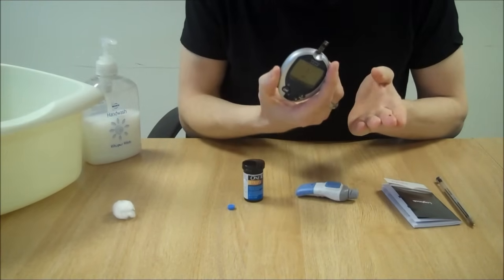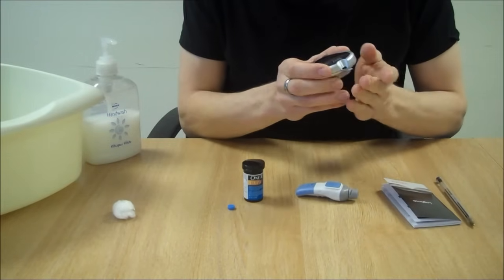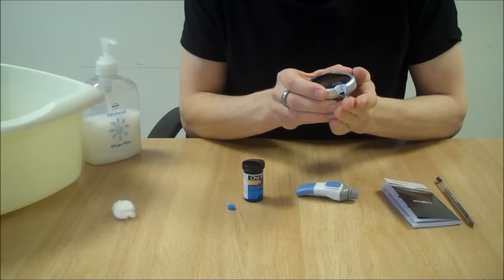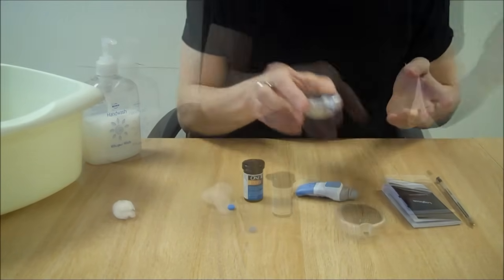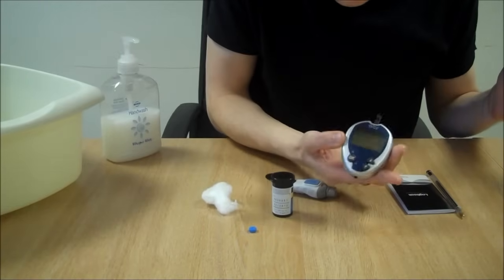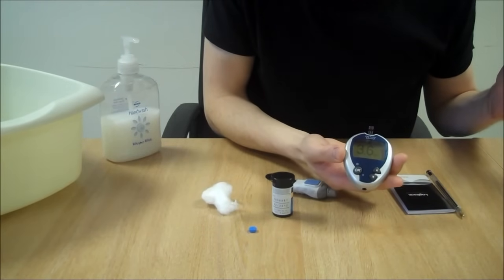Just check the machine is on before you put the blood onto the strip. The result should appear within a few seconds. There we go. It's a little bit low.